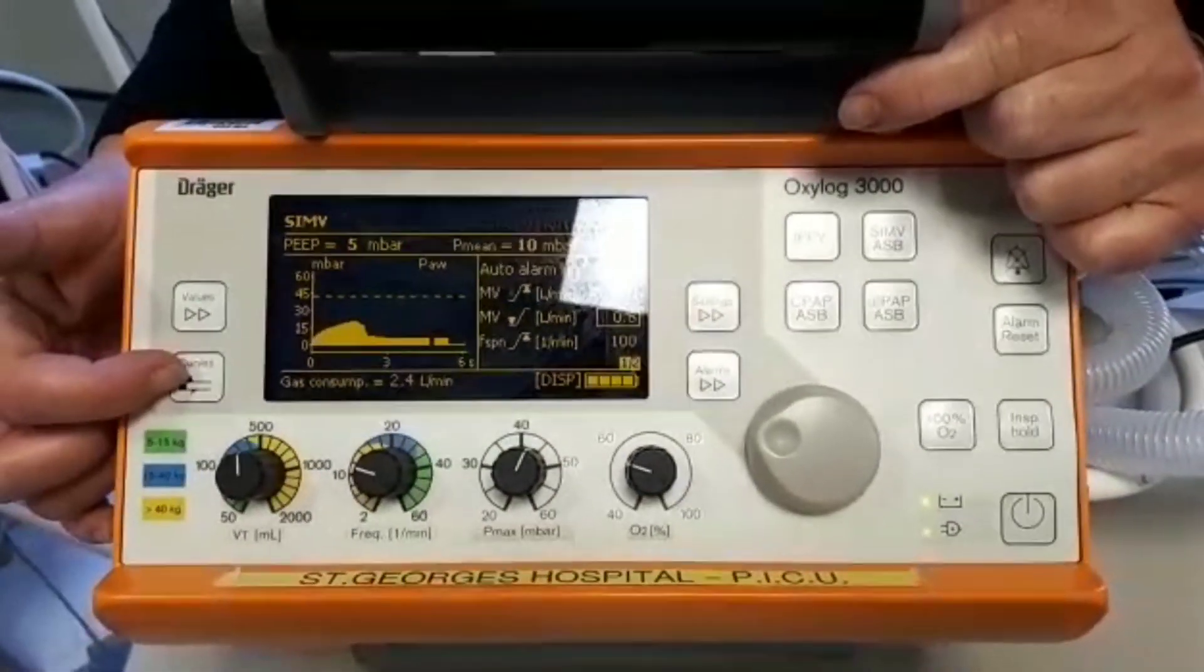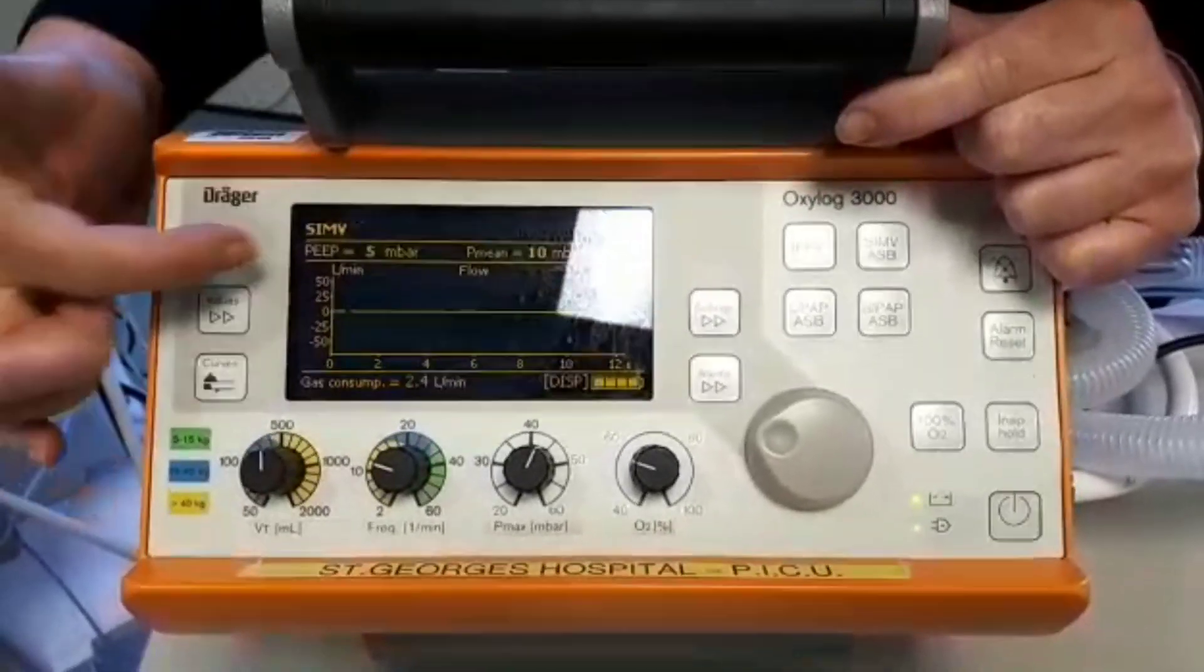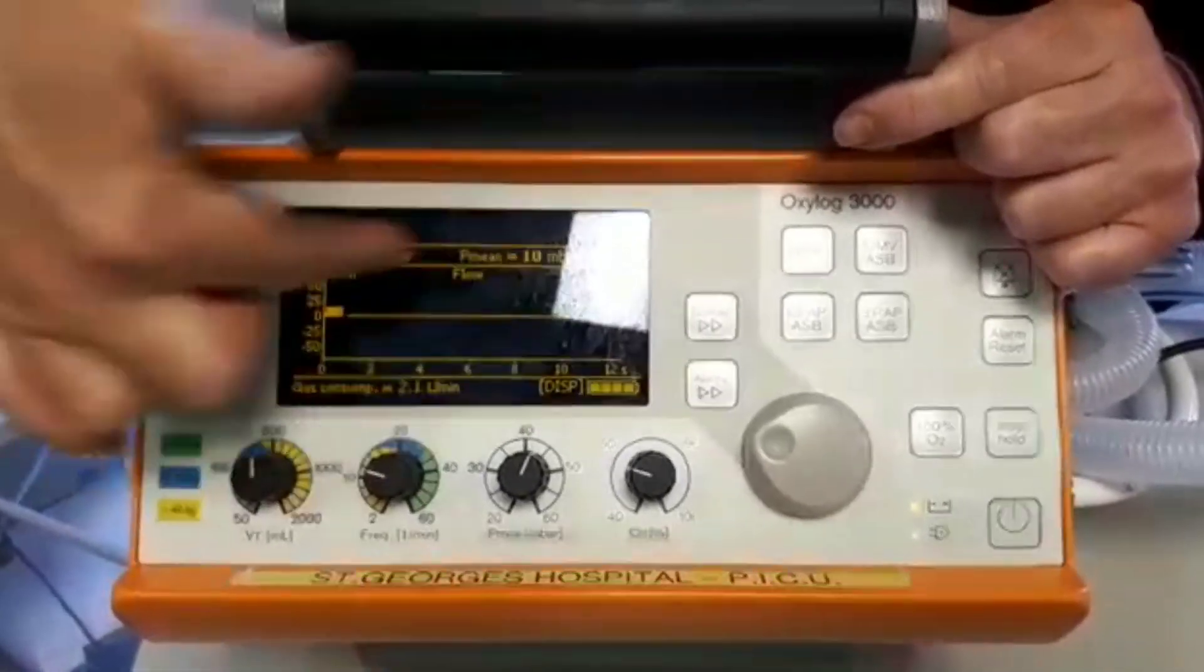We have a curve button here which changes what curve is shown on display and also allows you to have the curve all over the screen.